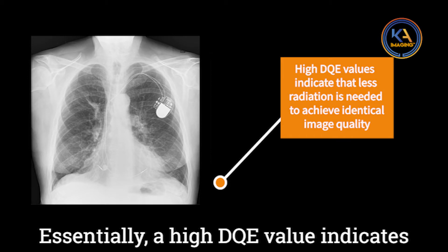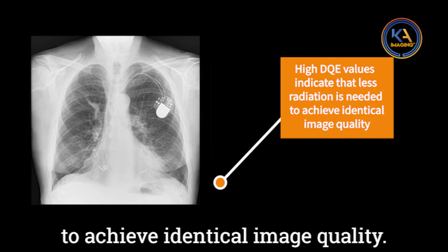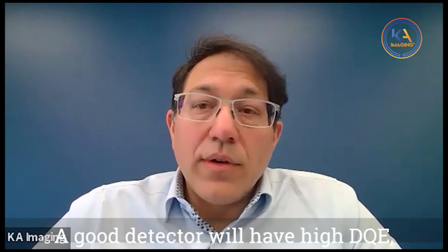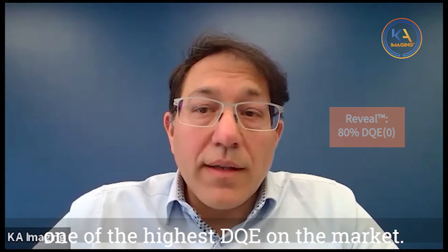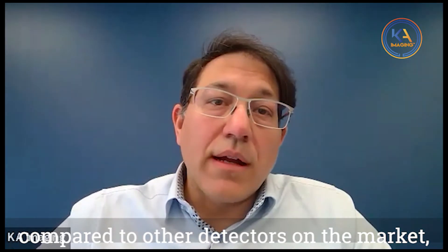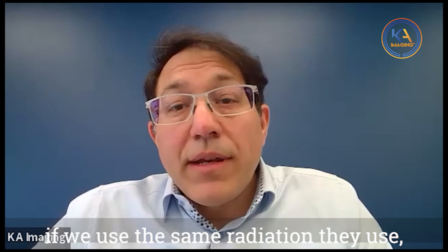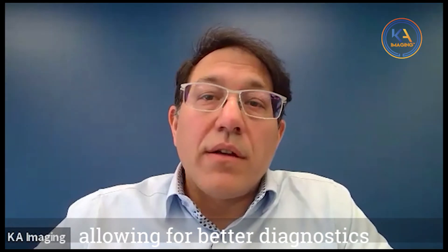A high DQE value indicates that less radiation is needed to achieve identical image quality. A good detector will have high DQE, and ours has been shown to be one of the highest DQE on the market. In other words, we can use less radiation compared to other detectors and deliver the same image quality, or conversely, using the same radiation improves image quality, allowing for better diagnostics for radiologists.